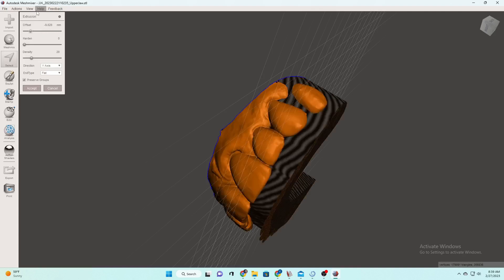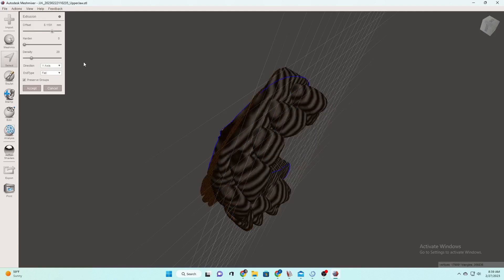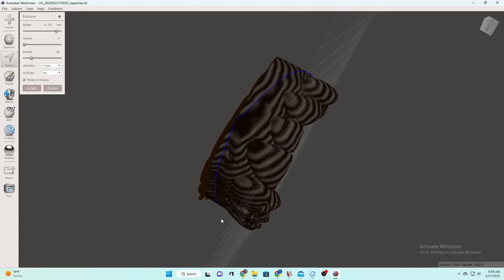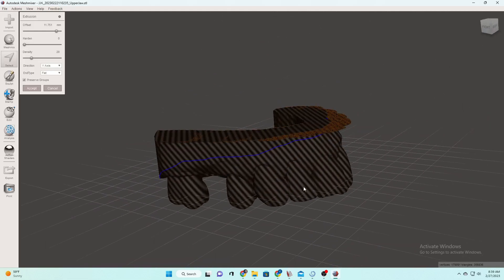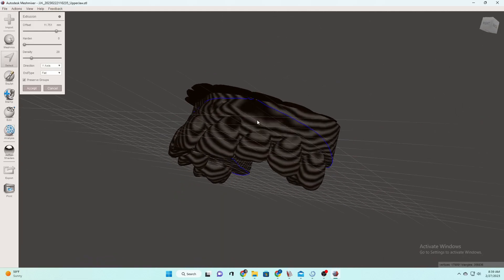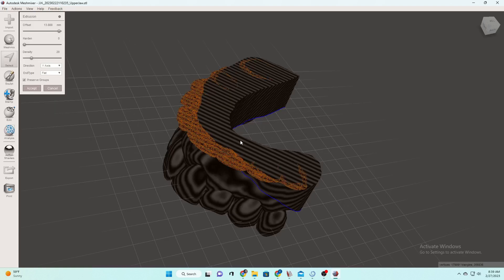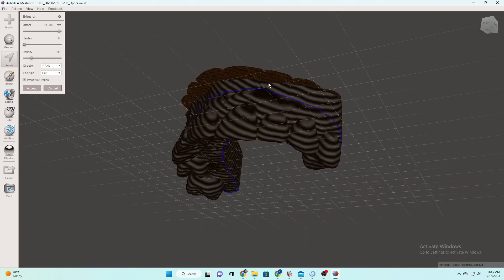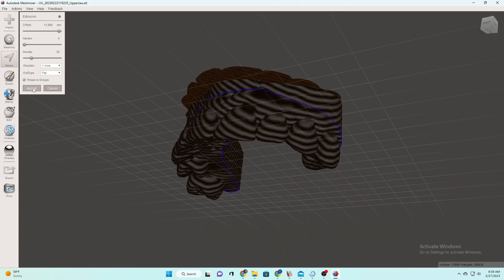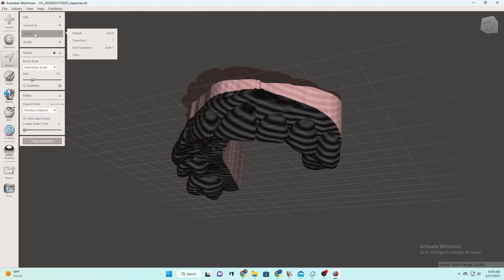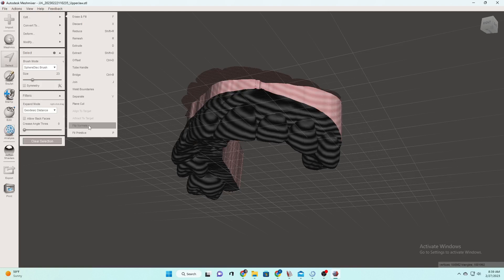That is going to tell it where to put it flat on the build plate. So you'll notice that offset that's where it's at on that 4D model builder. So for an upper model, you're always going to want to go kind of towards that right hand side. So we need enough offset to just give us a nice, good flat bottom on that. We passed all those blue margins that you can see, you don't ever want to go underneath there because it'll create a really uneven bottom. But now we've gone past those blue margins, we put a nice little base on it.